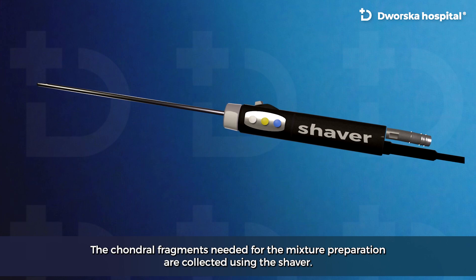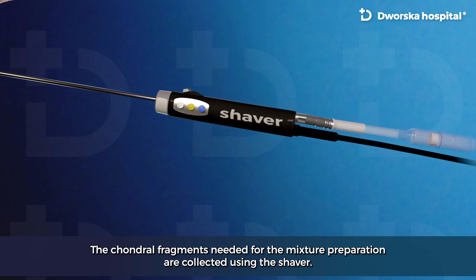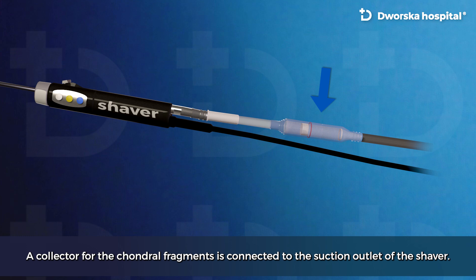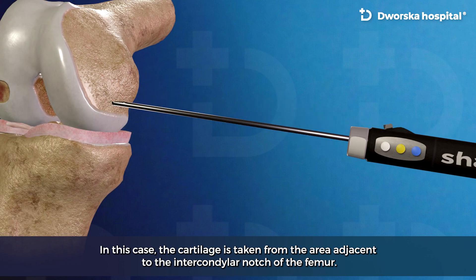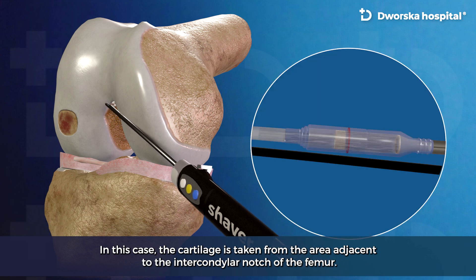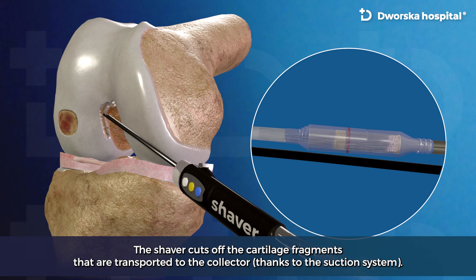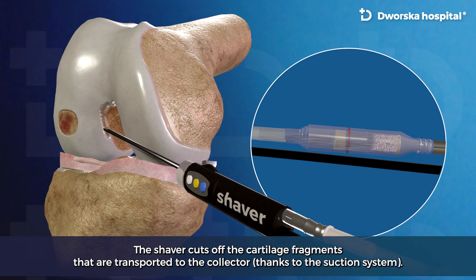The chondral fragments needed for the mixture preparation are collected using the shaver. A collector for the chondral fragments is connected to the suction outlet of the shaver. In this case, the cartilage is taken from the area adjacent to the intercondylar notch of the femur. The shaver cuts off the cartilage fragments that are transported to the collector thanks to the suction system.